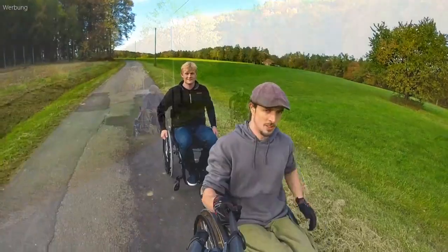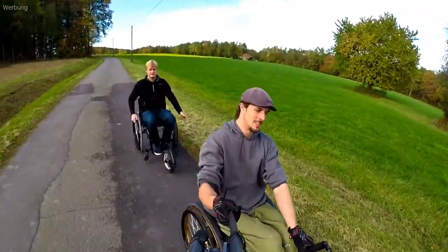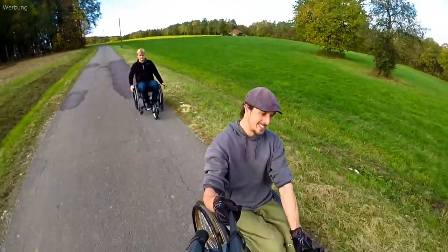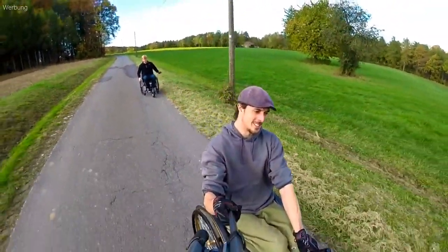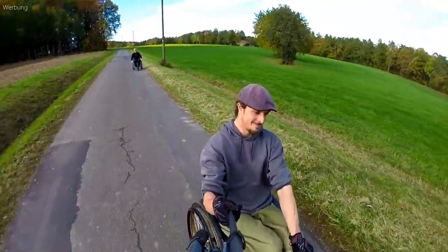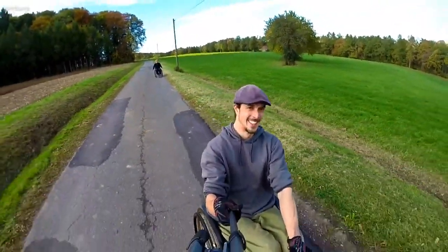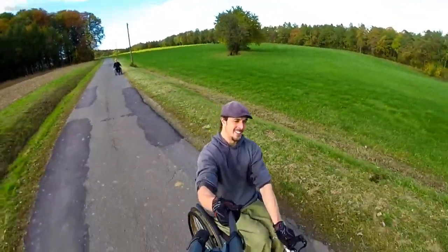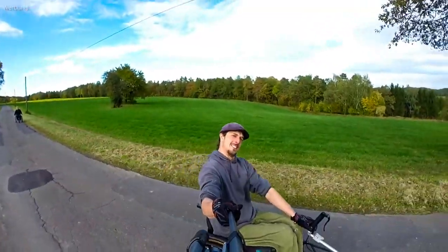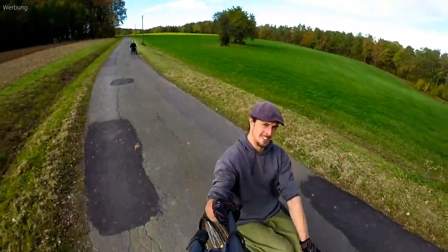Here is a small roll test. Hardly visible, but still there — this street has, like most paths, a very slight side inclination. So my colleague has to brake on one side in order to keep the lane and direction, while I can steer with one hand directly with the handlebar and hold the camera with the other.